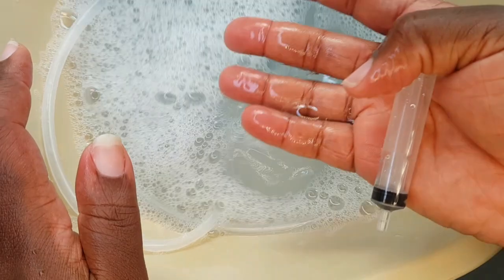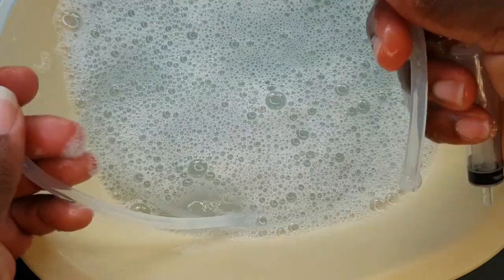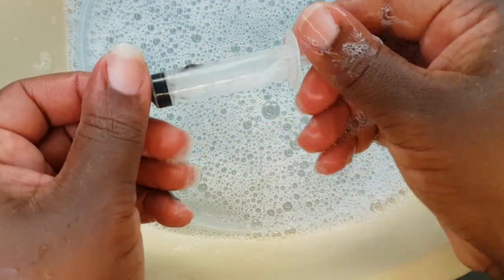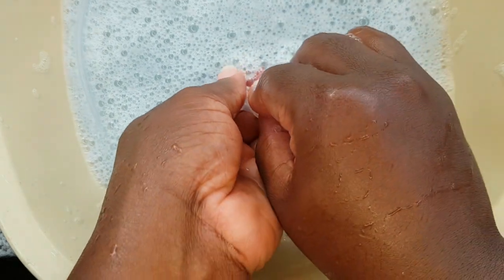Make sure that the water is not too hot but warm enough and it shouldn't be too lukewarm if that makes sense. You're also going to have your tubing and a syringe. I bought this syringe at a pharmacy and it was just one sitting.